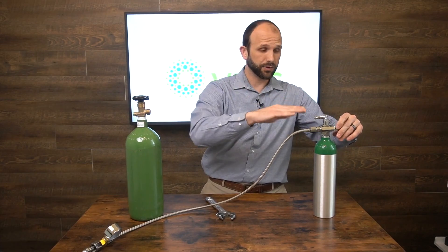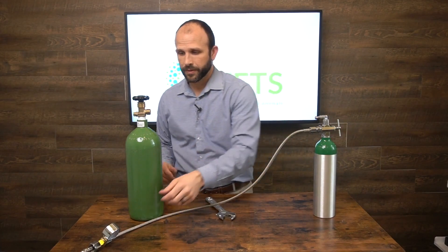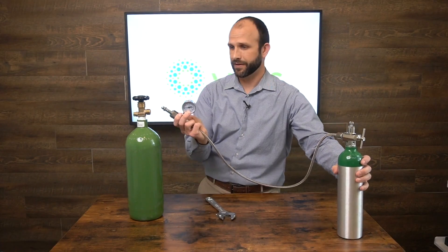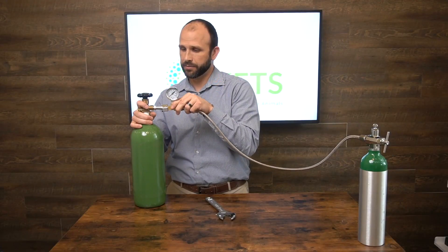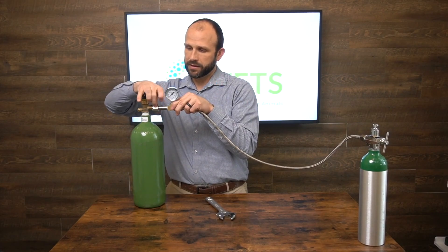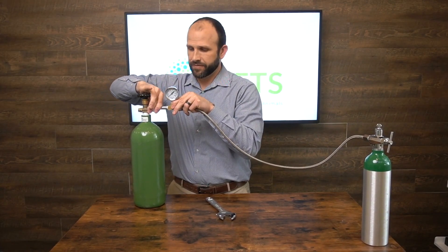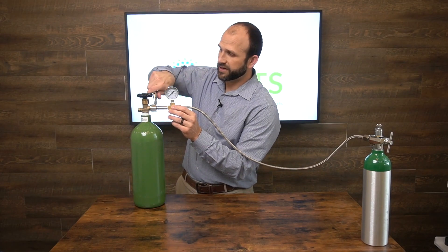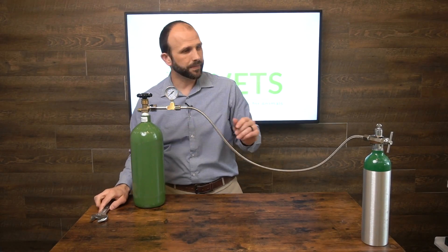It has to be at a 90-degree angle so it's not cockeyed, and then I'm just going to tighten that down. I'm going to connect it up here, push that in, slide the nut down, and when it's at a 90-degree angle I can finger-tighten this. Then I'll take my crescent wrench and make sure it's tight enough with a little extra turn.